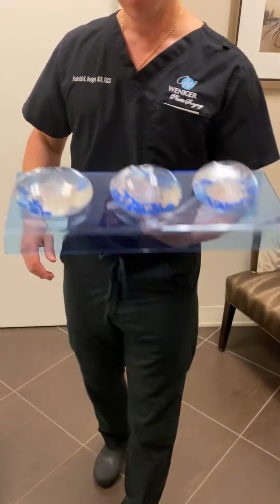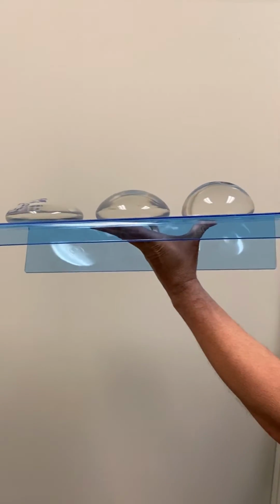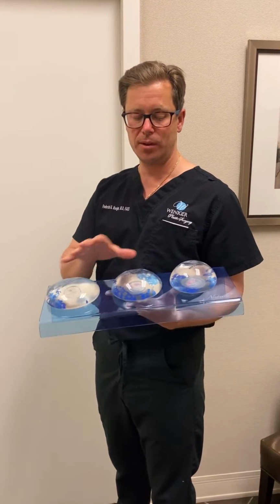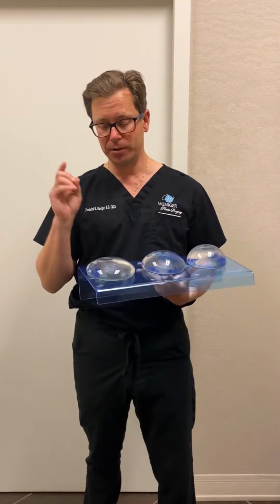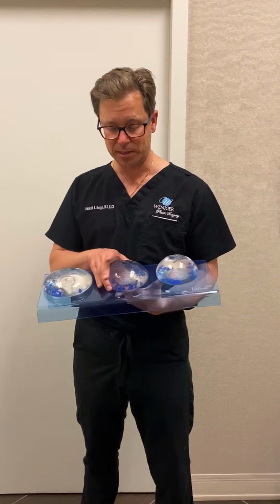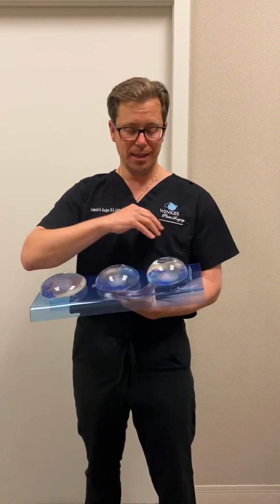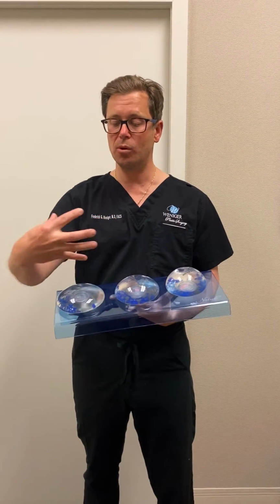Yeah, but if you look at it in this angle, this one sticks out so much further in front of you. So why do we decide on a flatter one versus a rounder one? Well, sometimes people want a certain look, but also, let's say the width of your chest doesn't have enough room for this implant or this implant, but you want a certain amount of fullness and you have enough skin. Then in order to get that bigger size, you have to go with an implant that's rounder so you can fit more in the given width that you have.